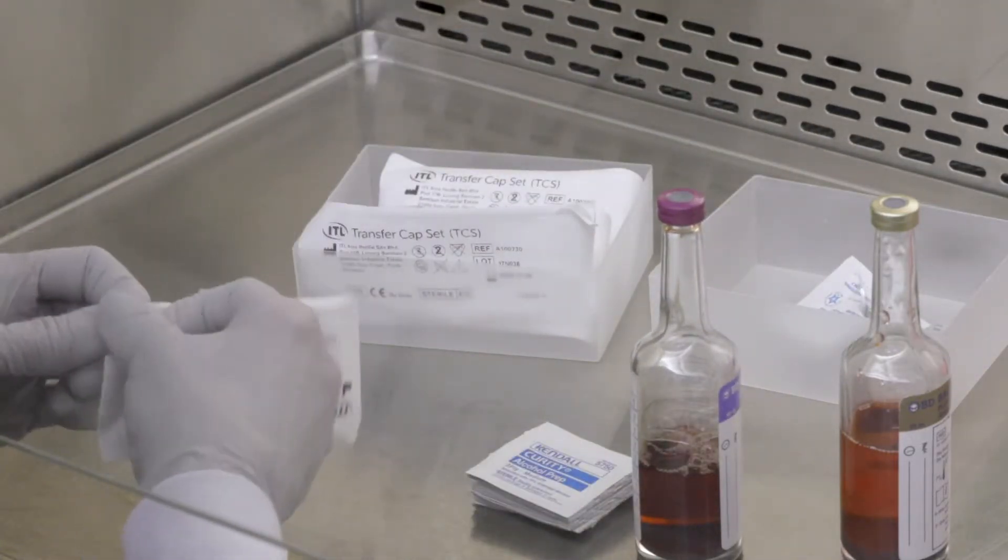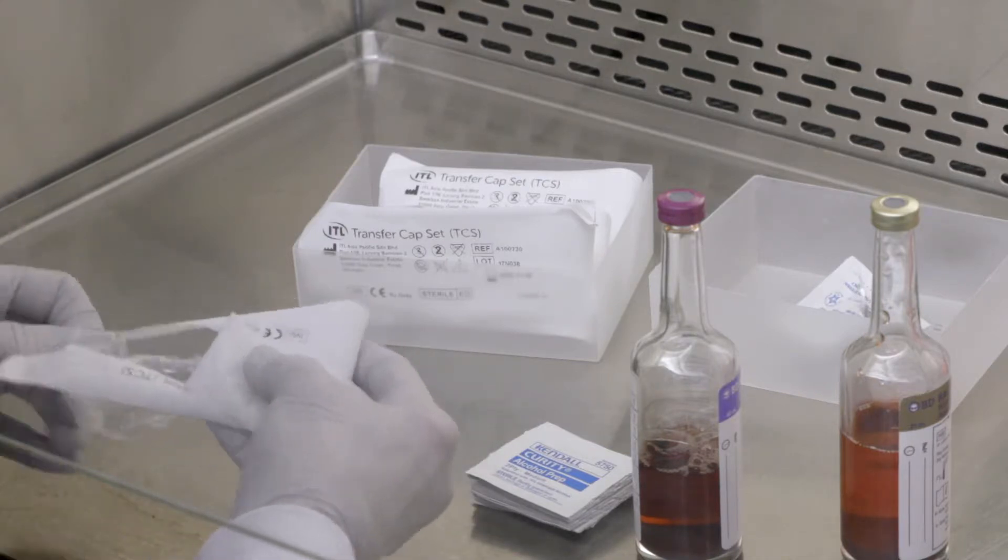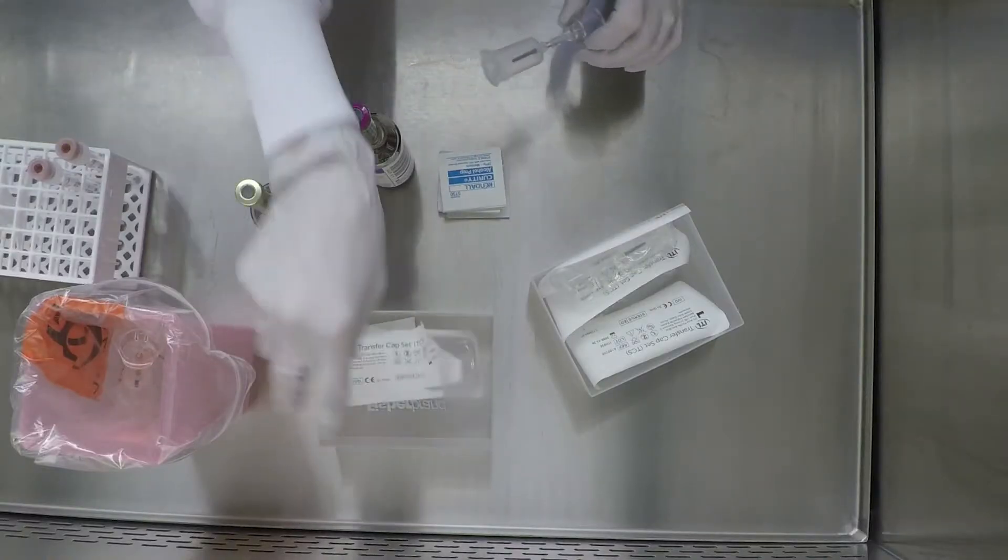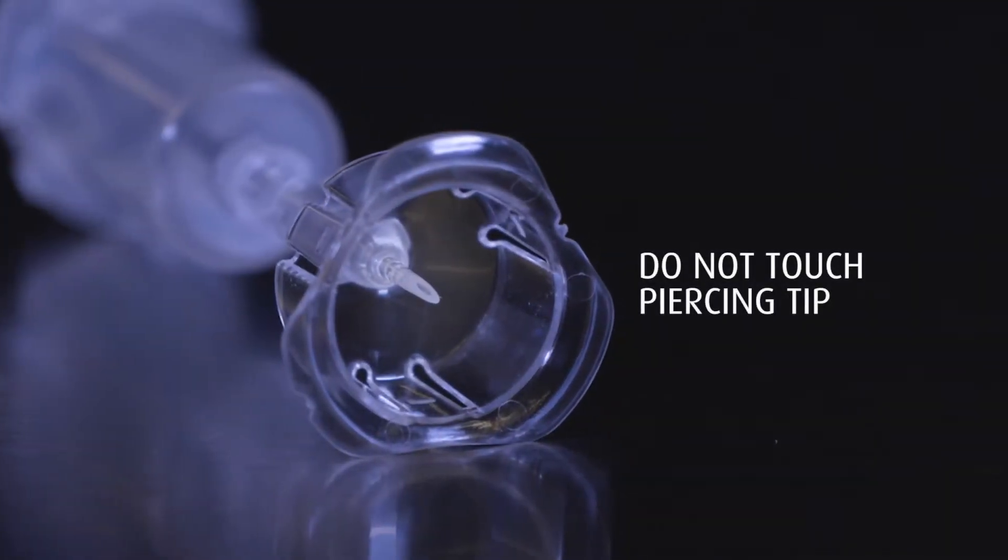Open the transfer capset package by peeling it apart at the peel tab end. Remove the transfer capset from the package, being careful not to touch the piercing tip.